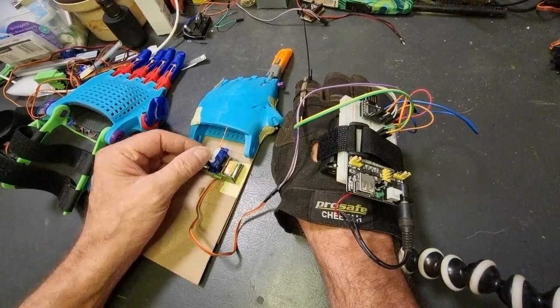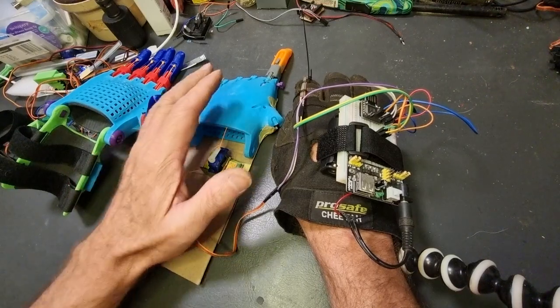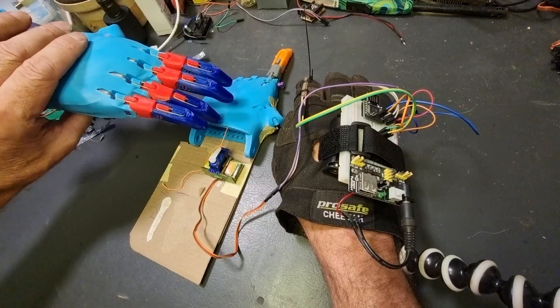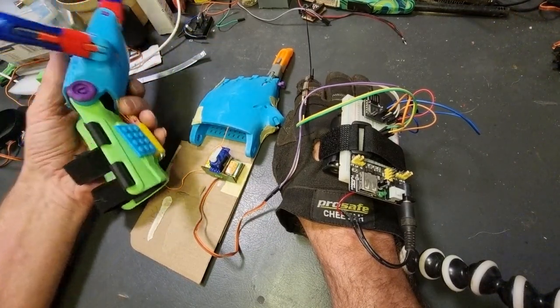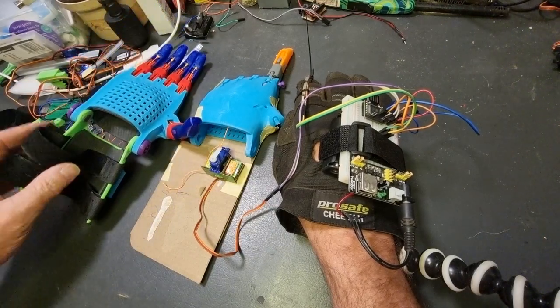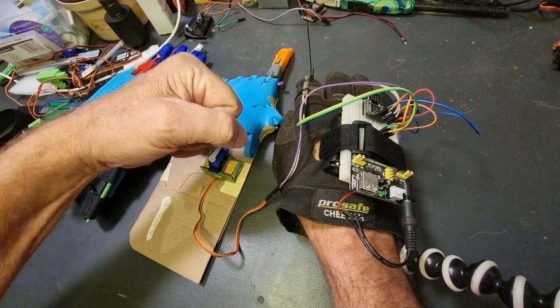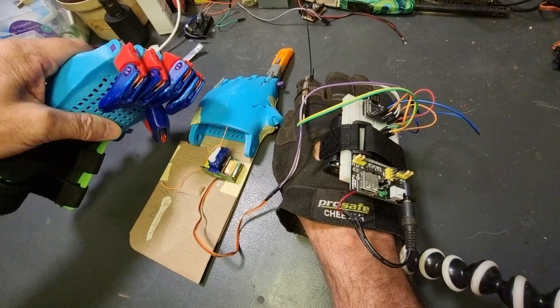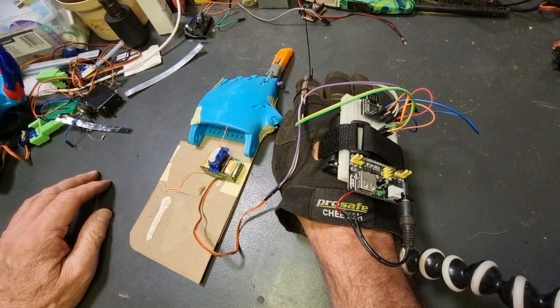Welcome back — or welcome, whichever the case may be. We've been working with our e-NABLE prosthetic hands, and we've made a few. You might have seen these colorful ones in my other videos showing the range of colors we have, plus a few extra that came in the mail today. If you've got a partial wrist and you can pivot your wrist like so, you can close the hand and grab things — that's how they work, and they work very well.